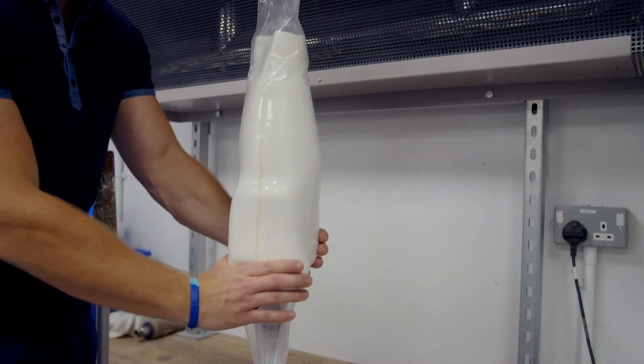And the vacuum former is sucking the foam towards the model, making it a perfect fit.